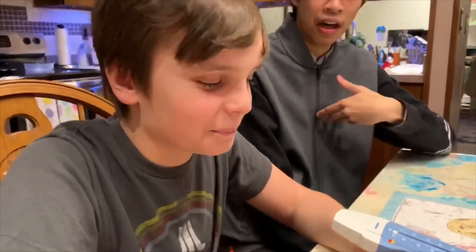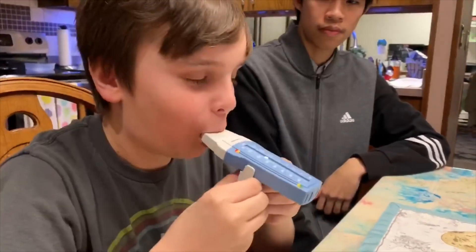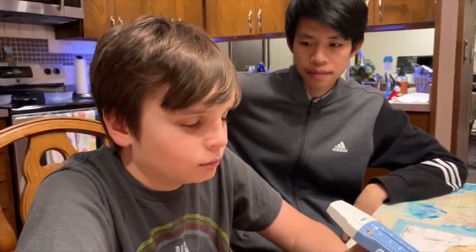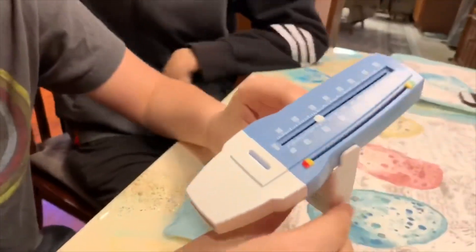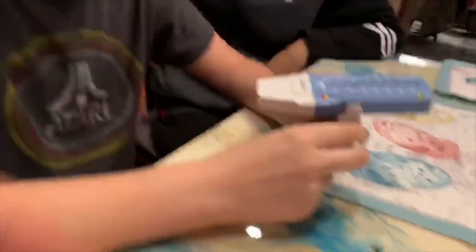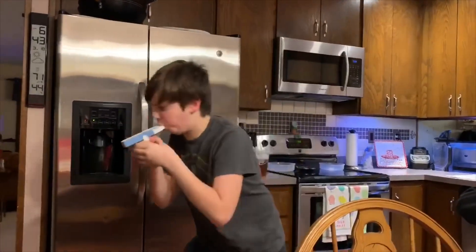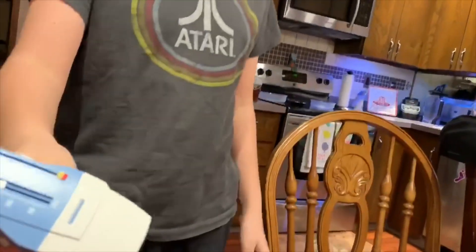Jack's ready to go — trying not to laugh. Take a nice deep breath, three good ones. He got 290 on the first try. Remember, you're 12, so you're going to have a lower number — it's not really about what number you get, it's about the comparison from day to day, that's what matters most. After a couple more attempts standing up, Jack's best was 390.